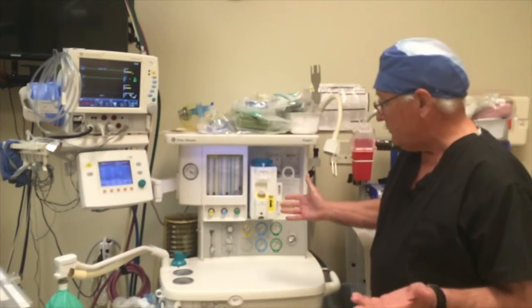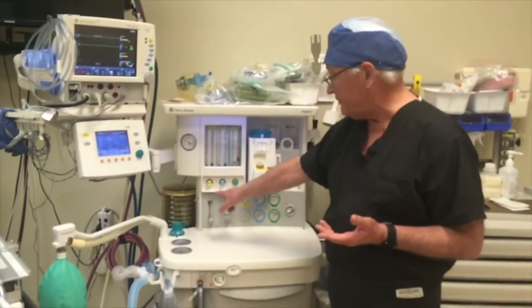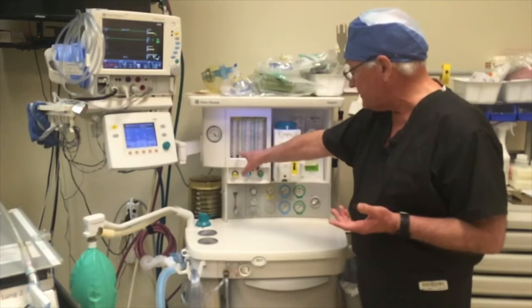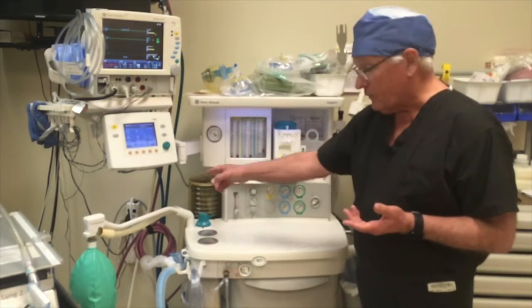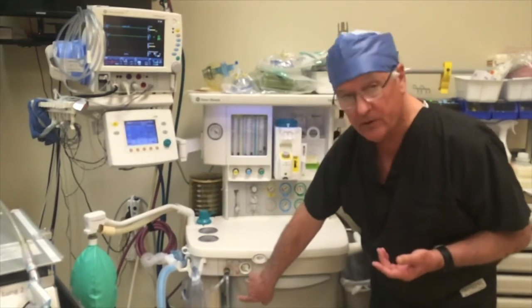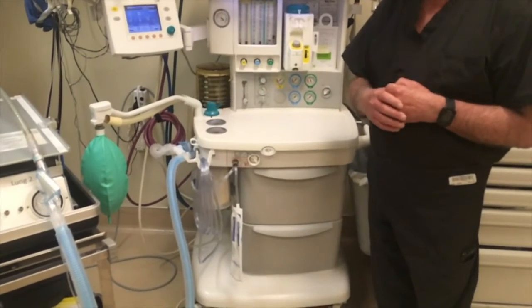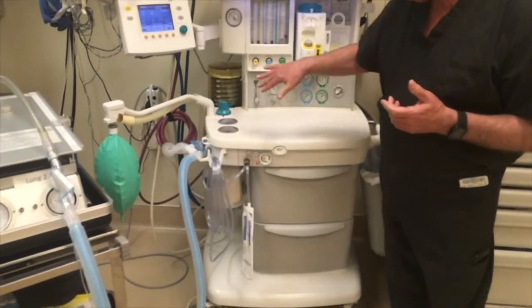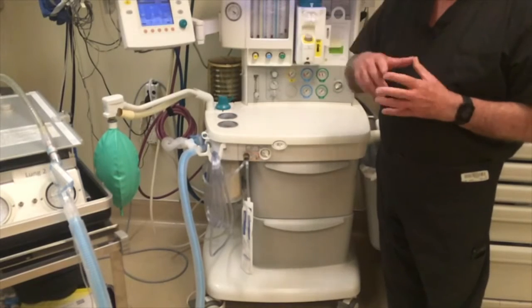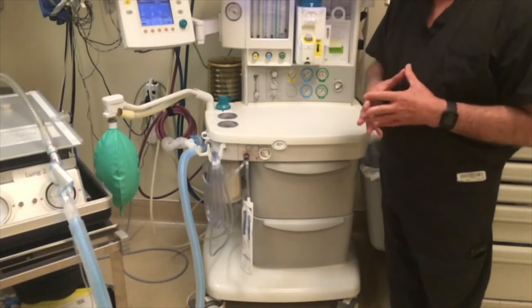The other big difference is going to be how we determine the FiO2. It's done by flows, and again, we're talking relatively low flows. We're only using 2 liters here. The way anesthesia machines are able to do that is hidden down underneath here. You can see this granular material here is soda lime. It's a CO2 absorber, so that the exhaled gases go through there, and the soda lime picks up the carbon dioxide and washes the carbon dioxide. And so we're able to run in a much smaller closed circuit.